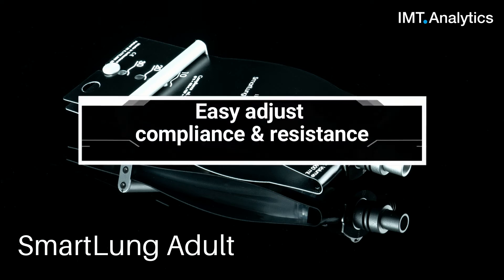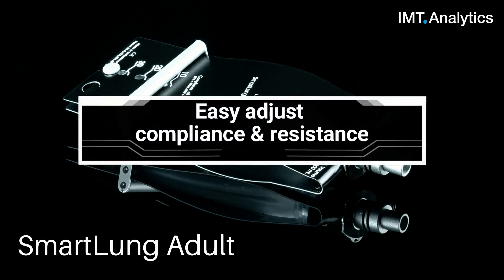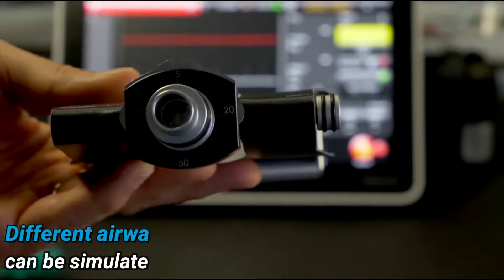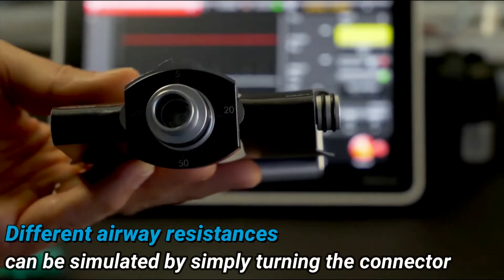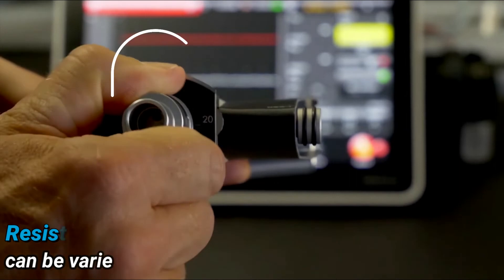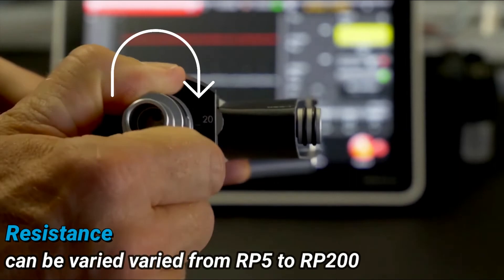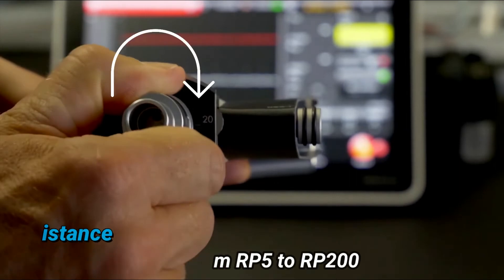Easily adjust compliance and resistance. Different airway resistances can be simulated by simply turning the connector. Resistance can be varied from RP5 to RP200.